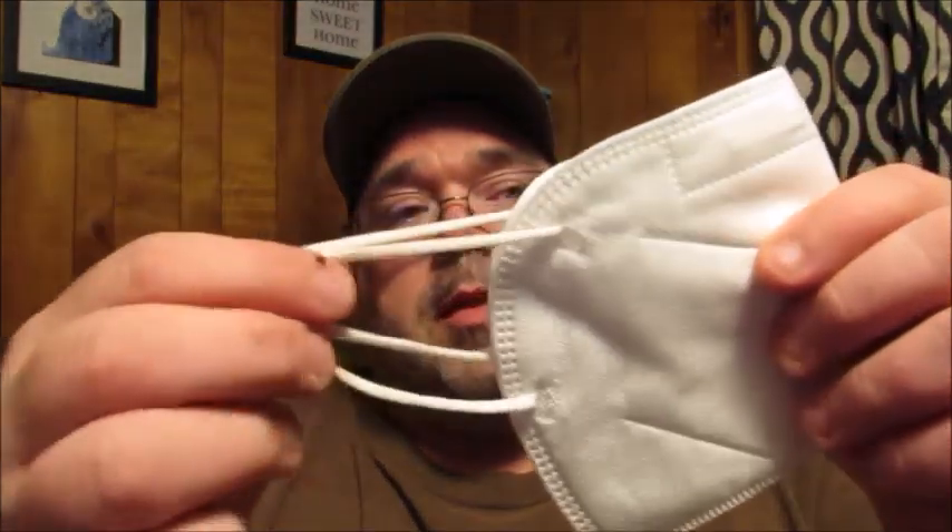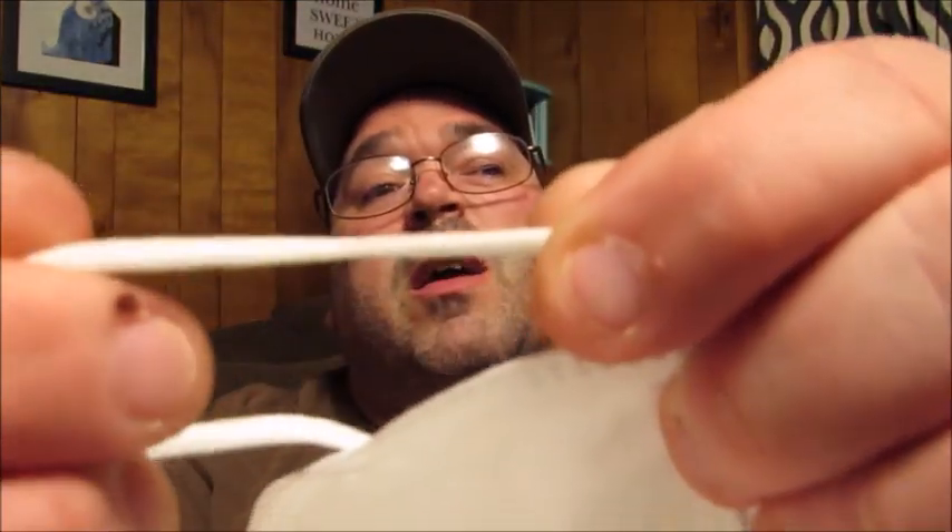The thing I like the most about this compared to a lot of other face masks out there is the ear things. They're kind of rounded and very stretchy and they fit my really big head. A lot of the ear pieces once they go on my ear pull so tight that they actually chafe the back of my ears, and I don't find that happens with these. So this is a really great product for me and something I recommend for my family.